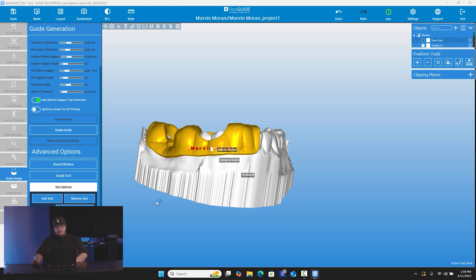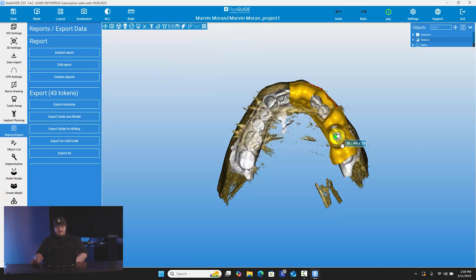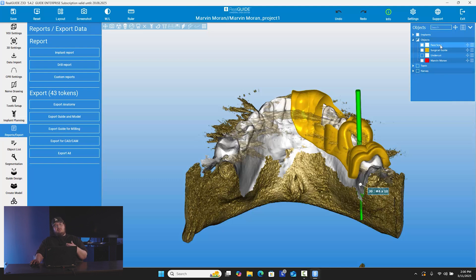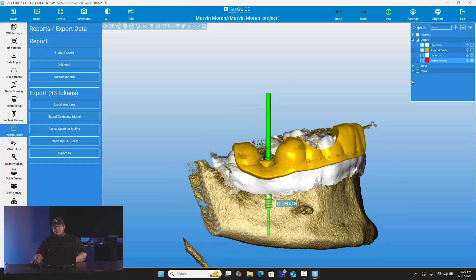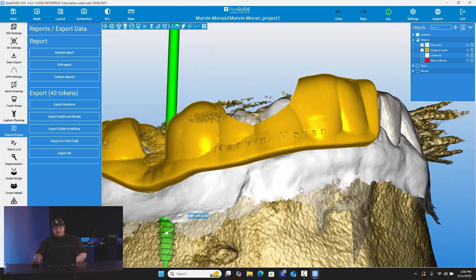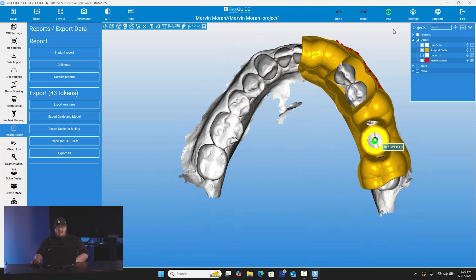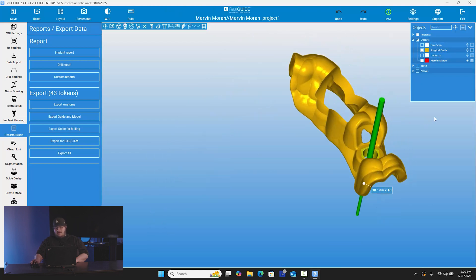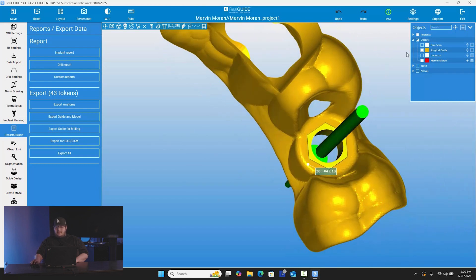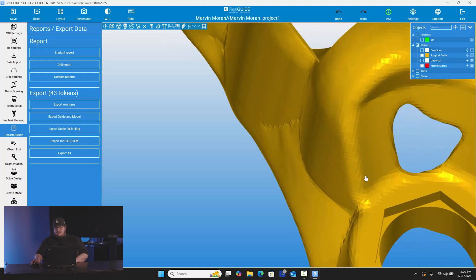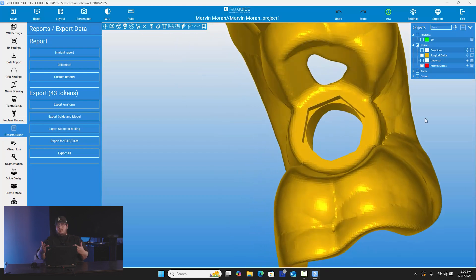As I make this window bigger, looking at our object list — because we made a surgical guide and an undercut — you now see we have a face scan, surgical guide, undercut model, and even where it says my name, which is just the words carved into the guide. You can actually get rid of it and see how the name is carved into the guide, just like that. Now that the guide is created, the hole has been created. If we get rid of the CT scan and some other objects, you can see the representation of the digital sleeve itself. If you go to implants, you can get rid of even the implant and see how it carves out the space for the sleeve. Whatever sleeve you're using will fit perfectly inside this surgical guide once it's printed or milled out.